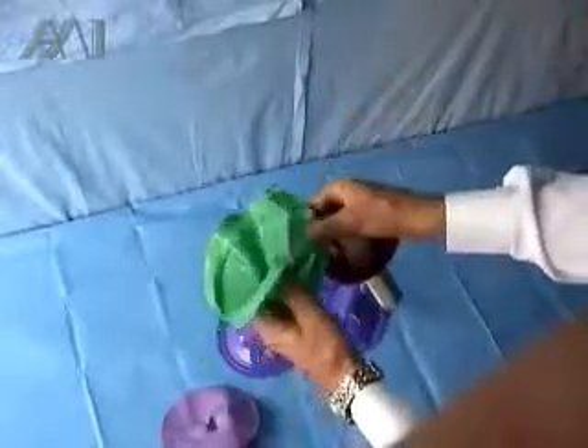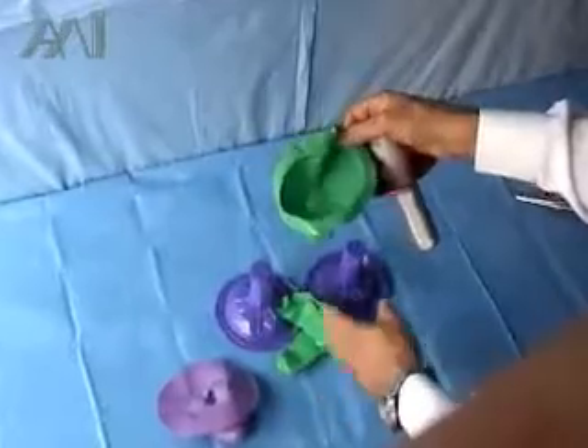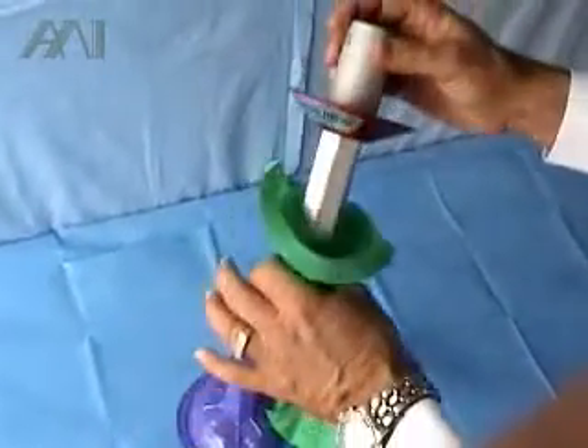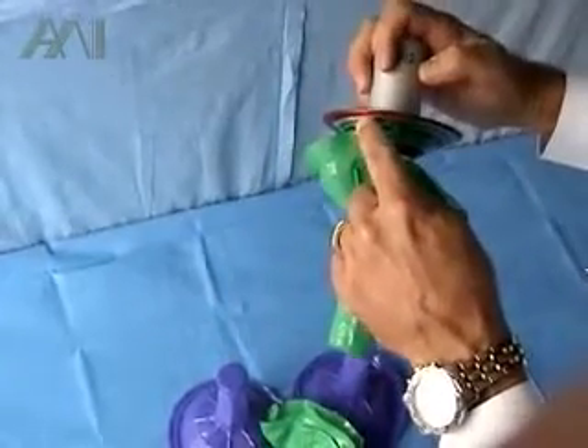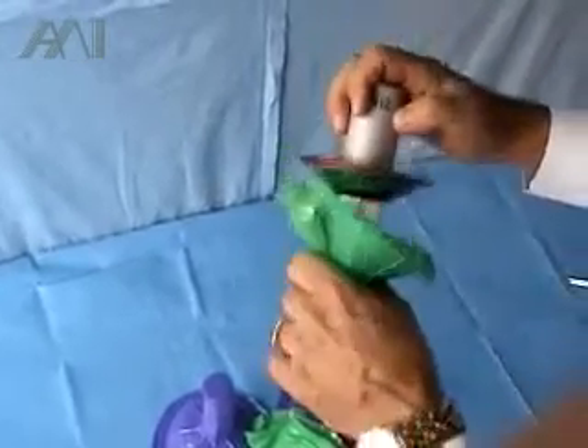As you can see, existing green light handle covers are folded and take a set during surgery. This is not sterile — this is sterile. The minute you have contact between a non-sterile and a sterile edge of the cover, you contaminate the cover.